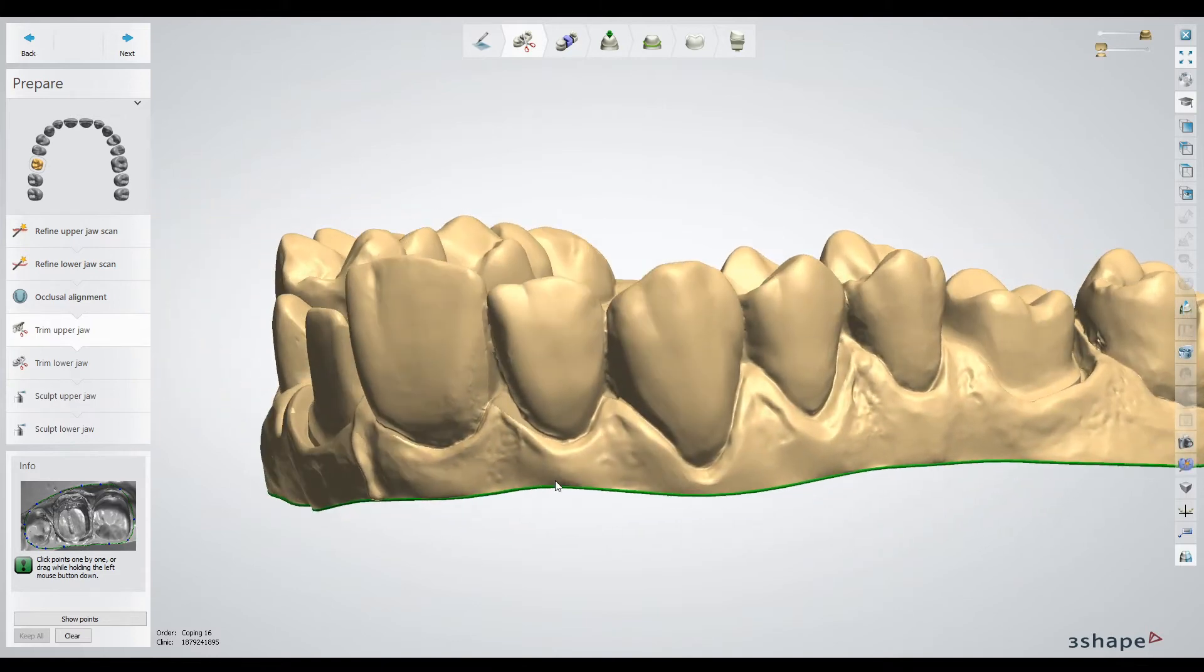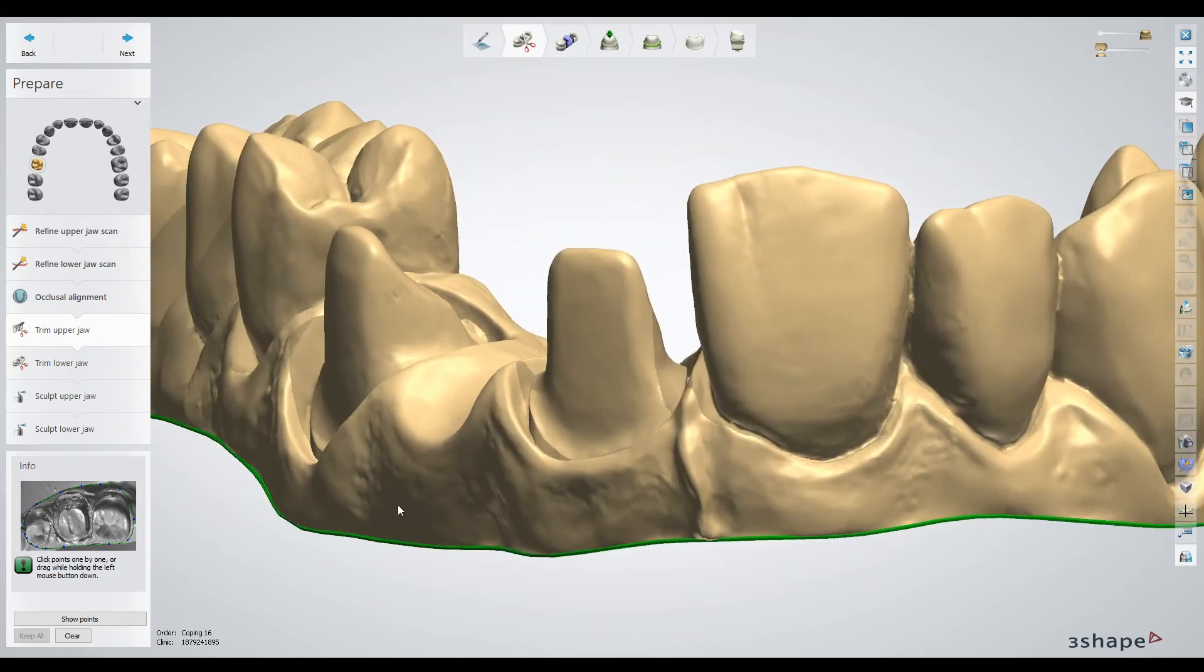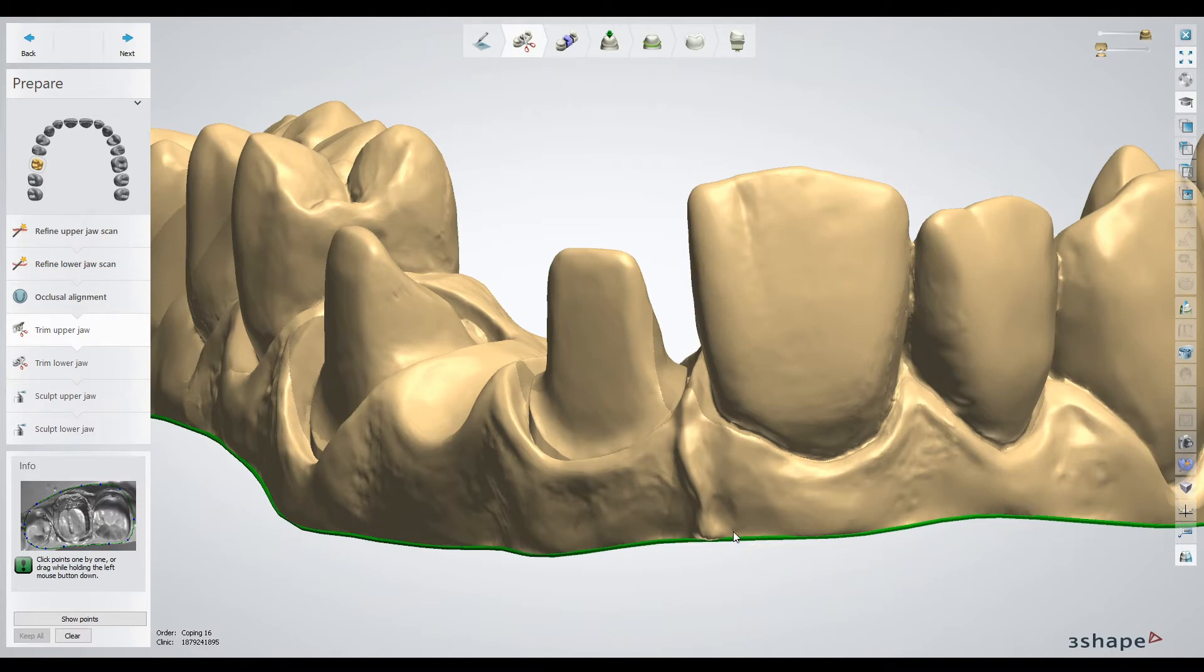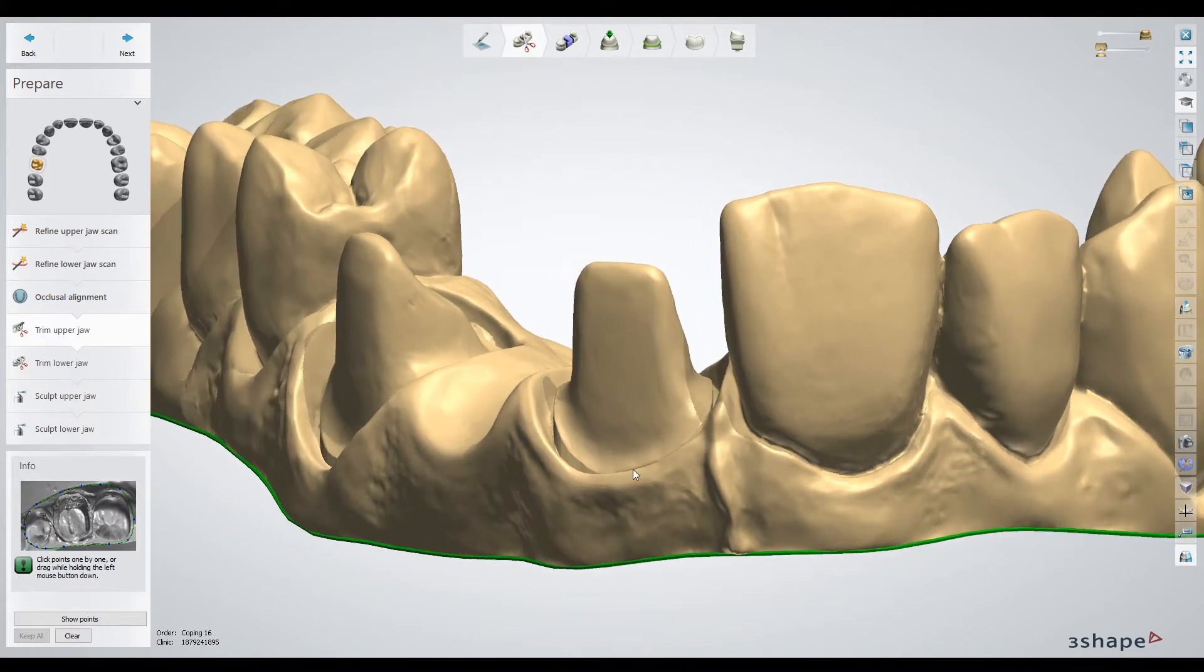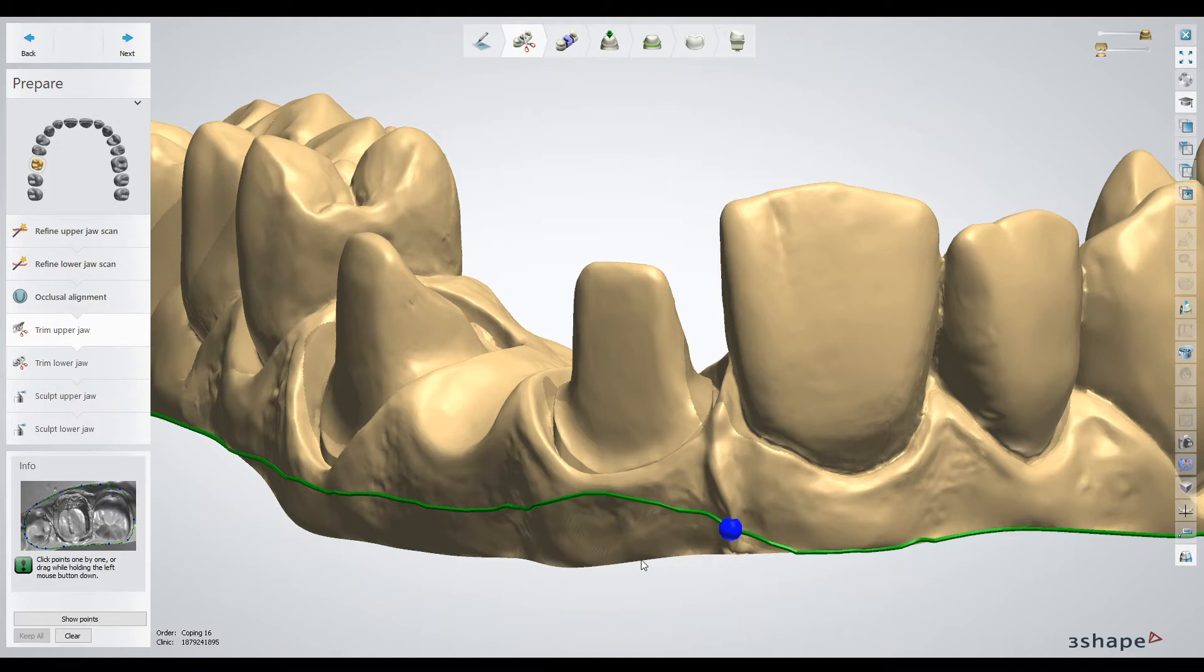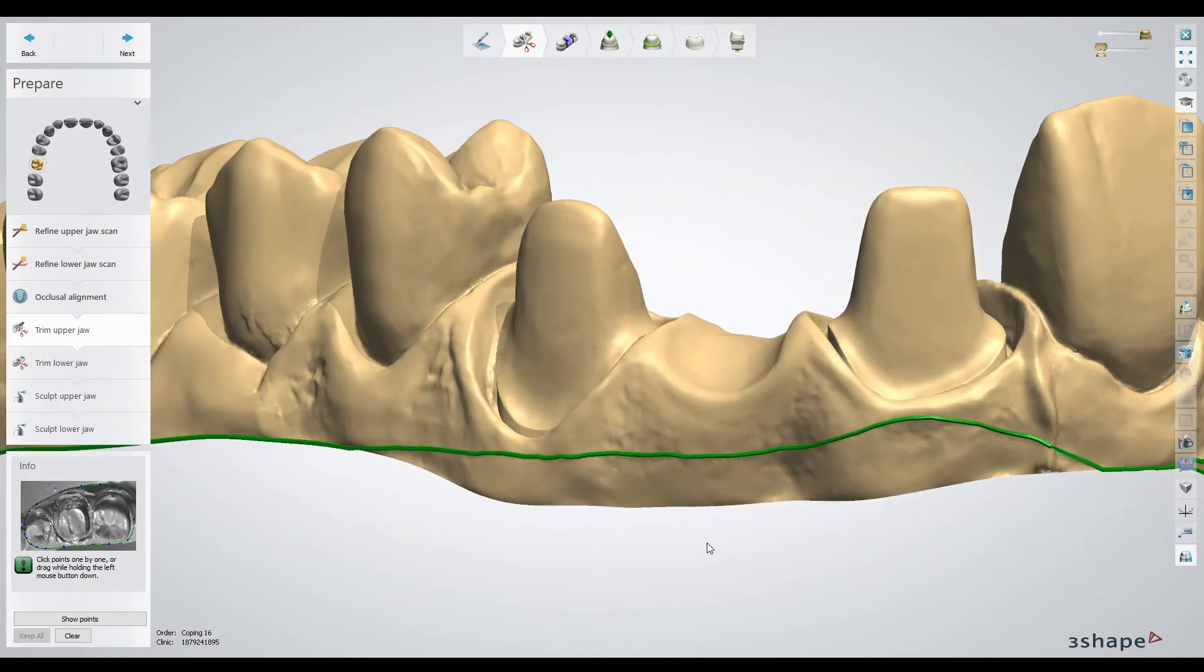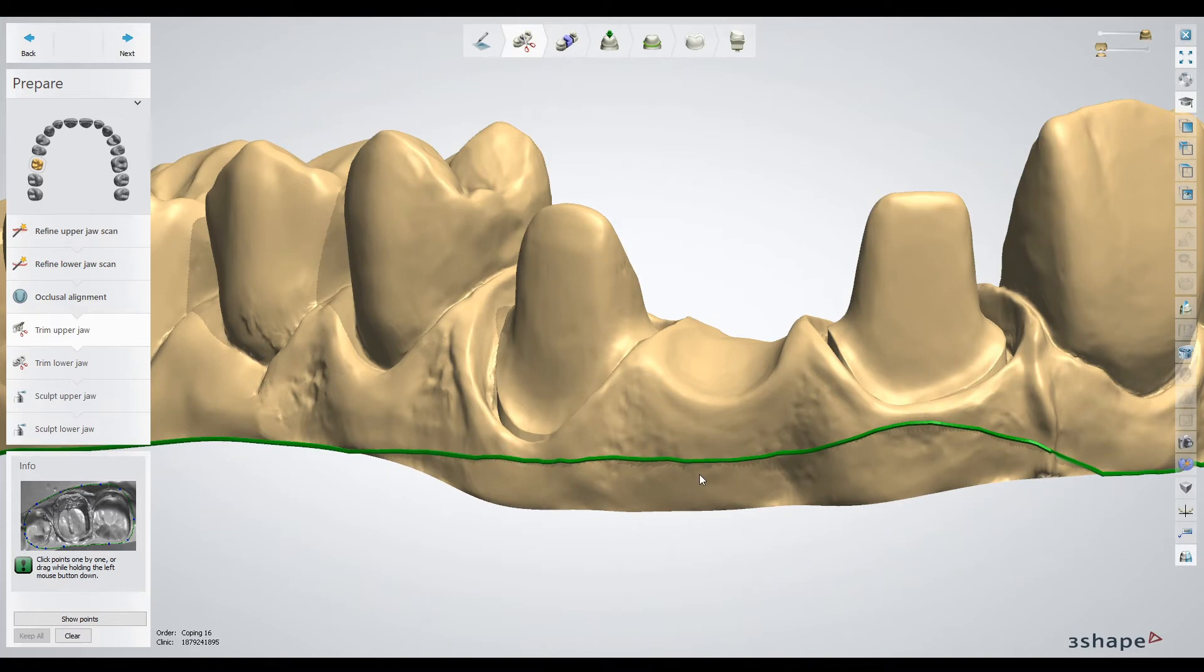Especially in anterior dies where the gingiva is cutting in, you could get a wall that might be too thin, especially for removable die models. Not so important with solid models—solid models are a lot easier for many reasons. You can left click and redrag the perimeter. Of course you don't want to remove any geometry that is important to the design or preparation of the case, but you can left click and drag a new perimeter and it trims it up to this new line. Pretty much you just design the case as normal from here.